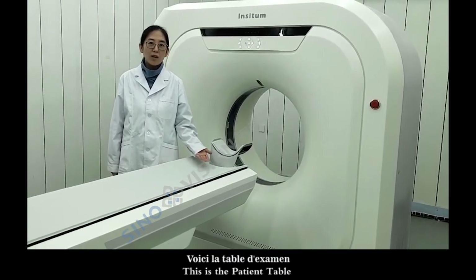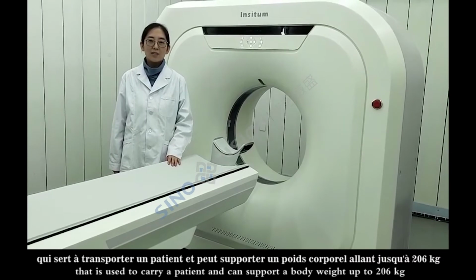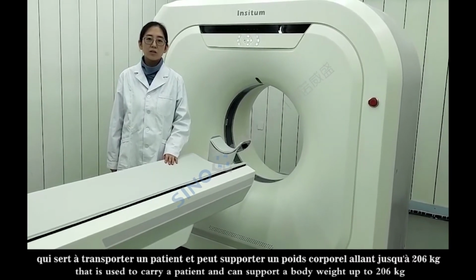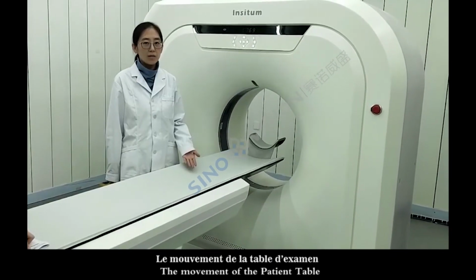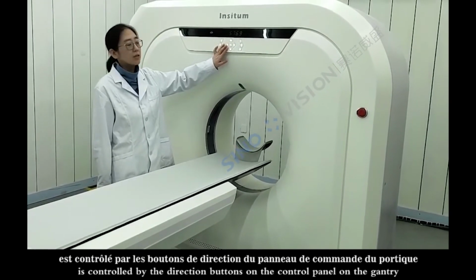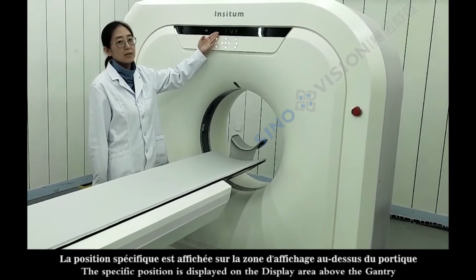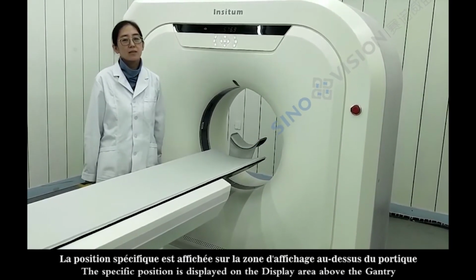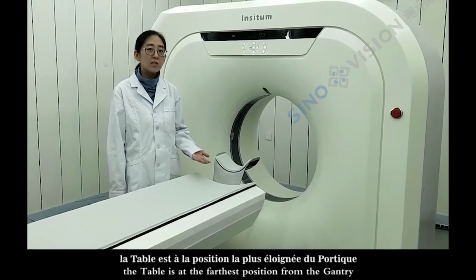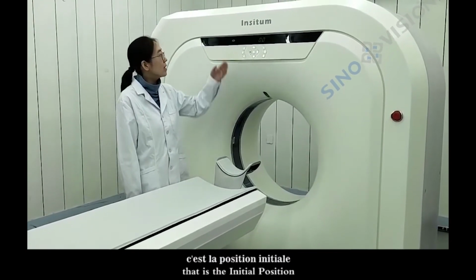This is the patient table that is used to carry a patient and can support a body weight up to 206 kilograms. The movement of the patient table is controlled by the direction buttons on the control panel on the gantry. The specific position is displayed on the display area above the gantry. At this time, the table is at the farthest position from the gantry. That is the initial position.